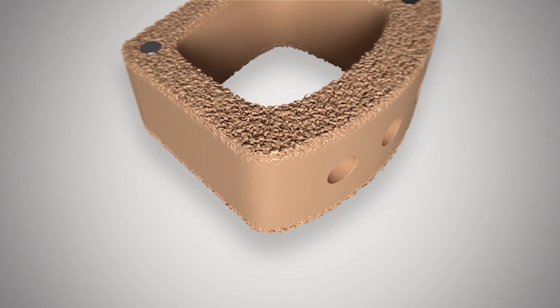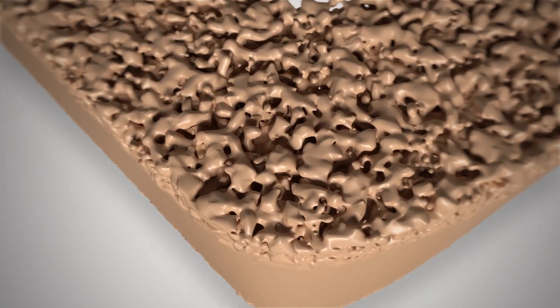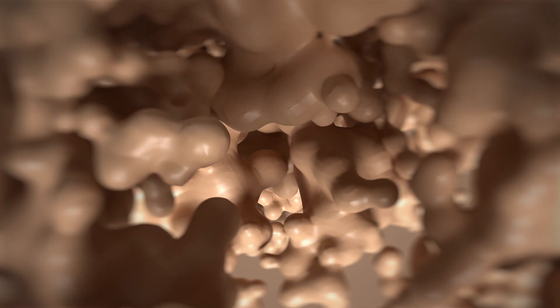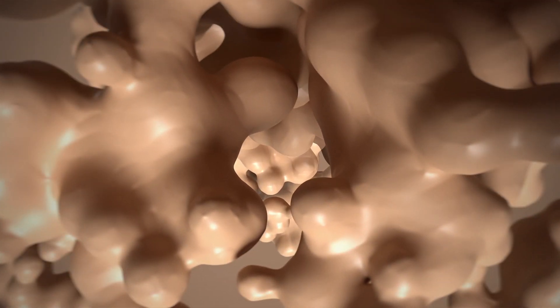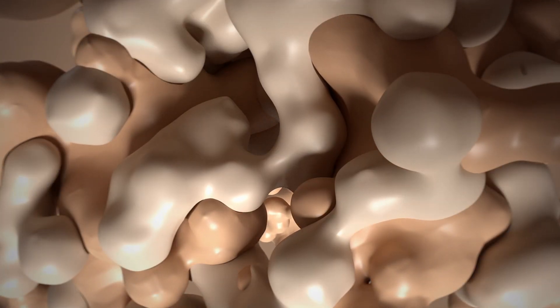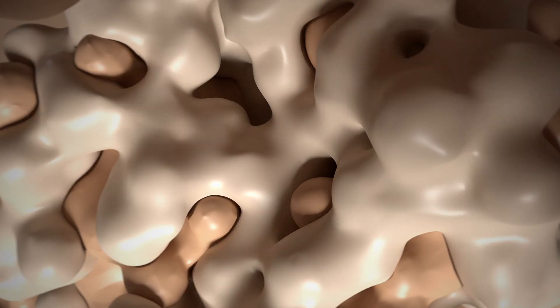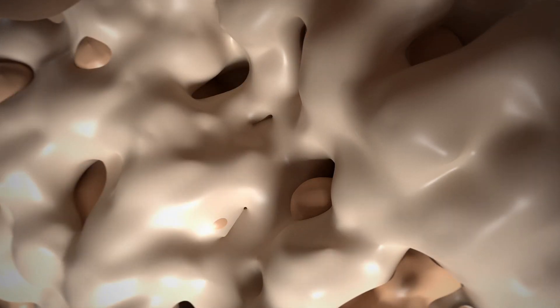Preclinical studies have shown the 300 to 425 micron pore size of porous PEEK enhances the activity of bone-forming cells, allowing the implant to participate in the fusion process, supporting strong mechanical interlock through bone in-growth.